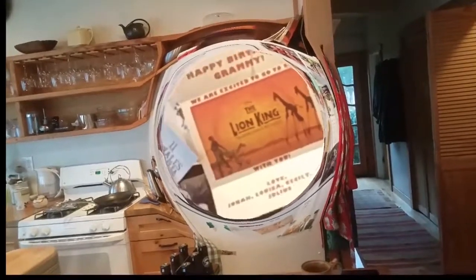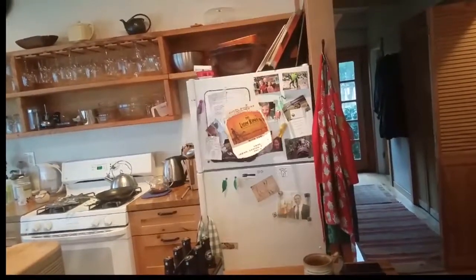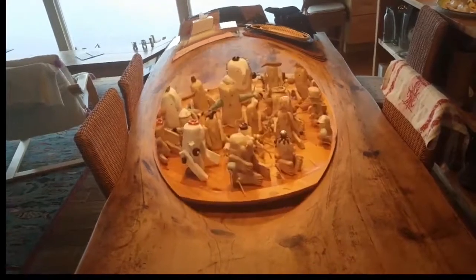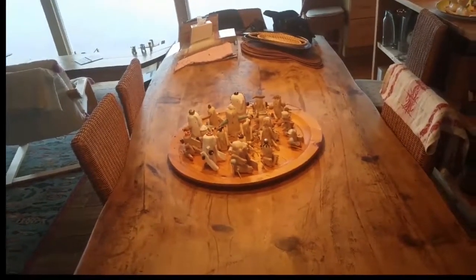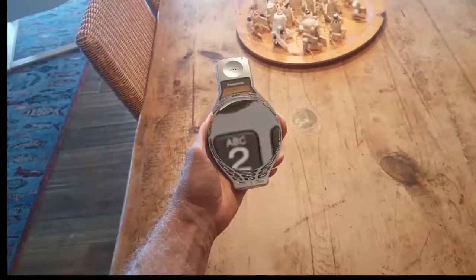And what is this configuration on the dining room table? It's that sculpture that our granddaughter made last week. Moving on, you can clearly see the numbers on the phone.